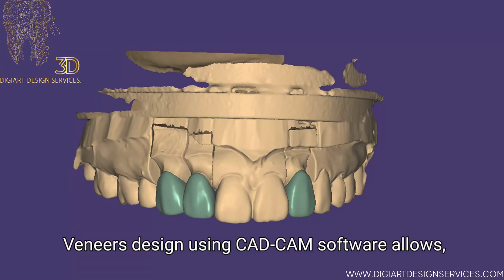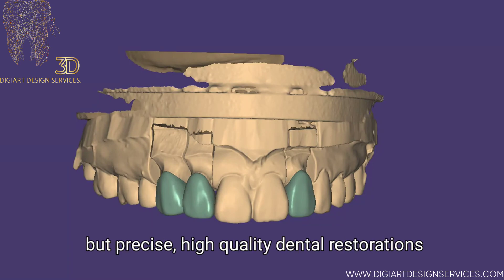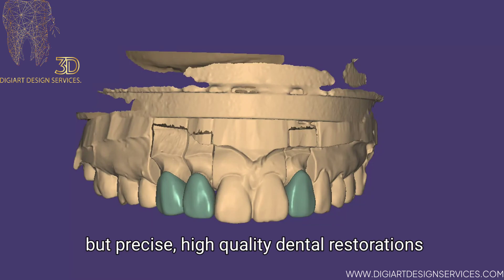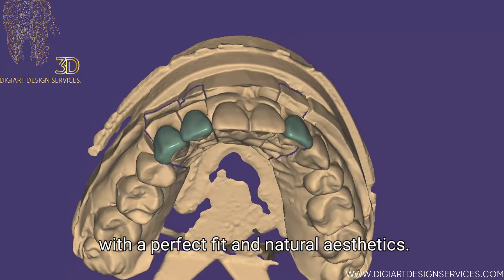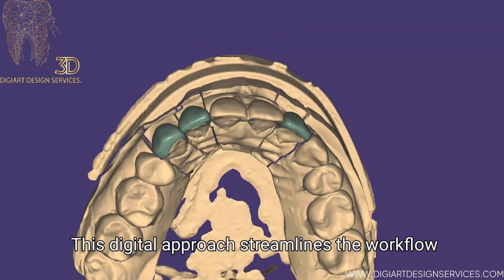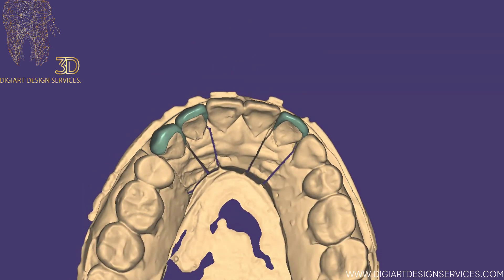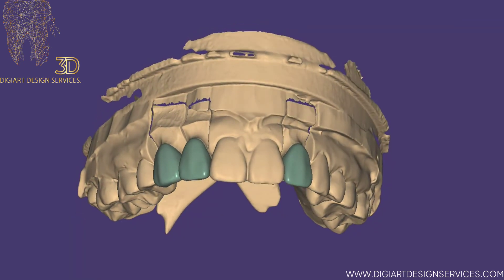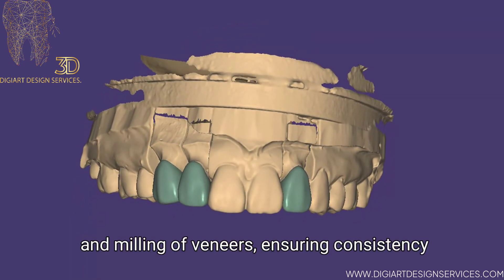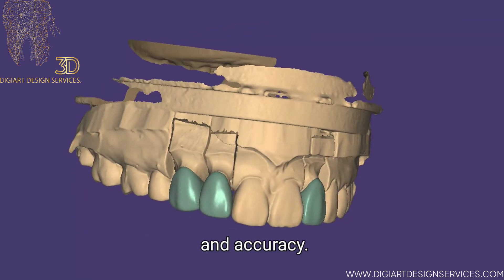Veneers design using CAD-CAM software allows for precise, high-quality dental restorations with a perfect fit and natural aesthetics. This digital approach streamlines the workflow by enabling efficient design, modification and milling of veneers, ensuring consistency and accuracy.